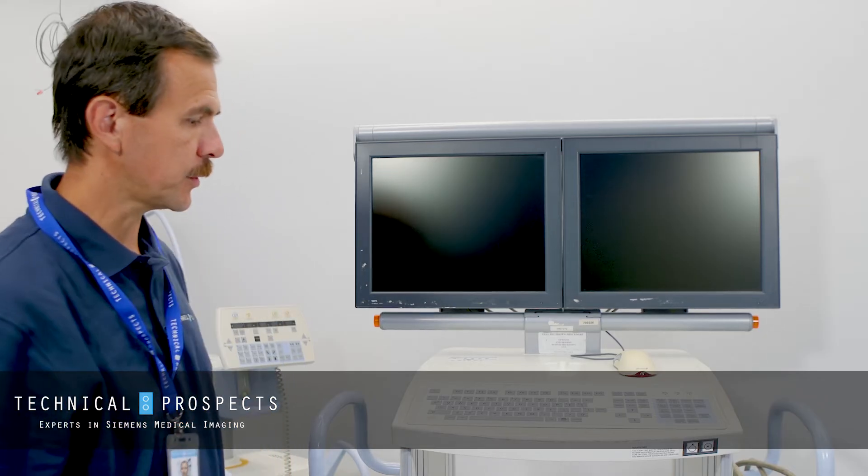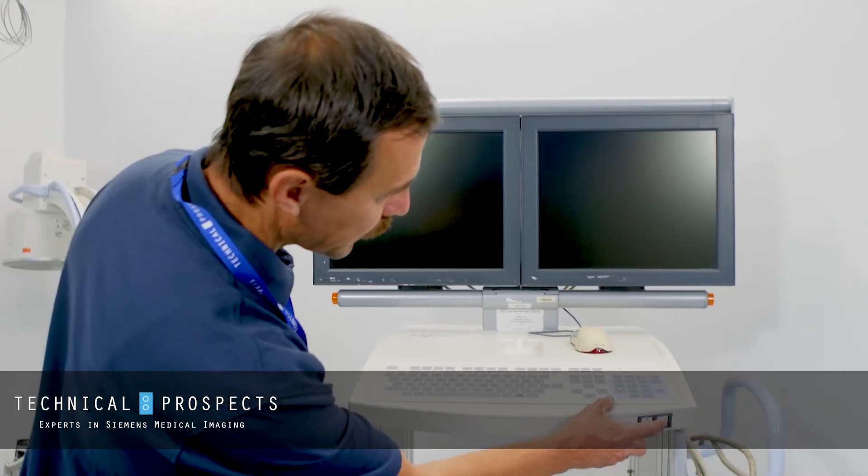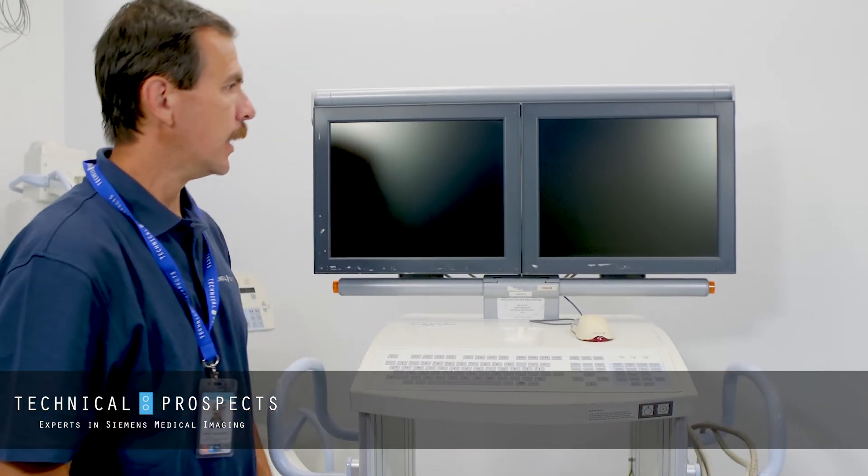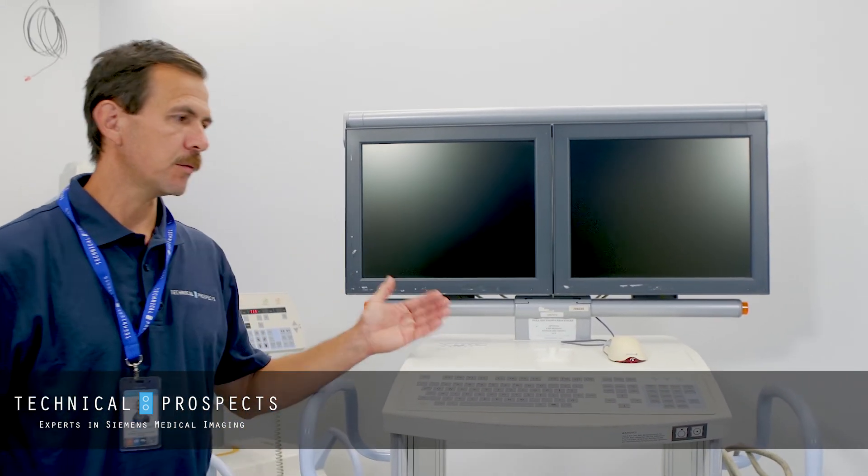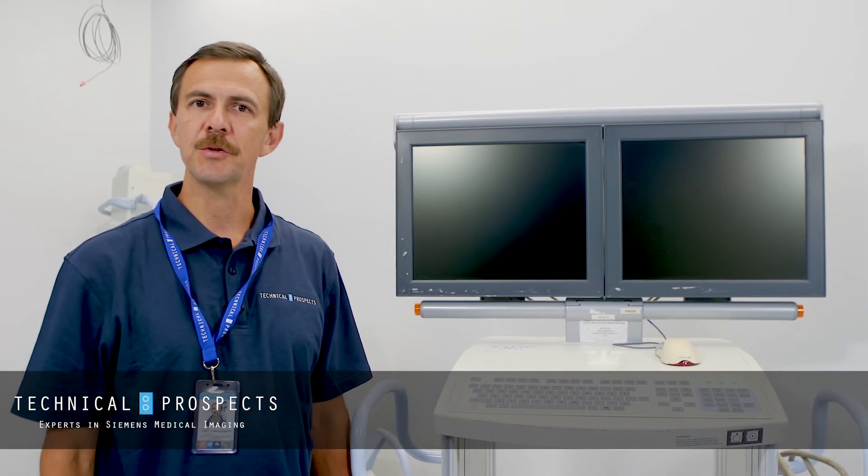After we reset the computer with the reset button, we power on the system back and typically it will wake up in good working condition, ready for your users.